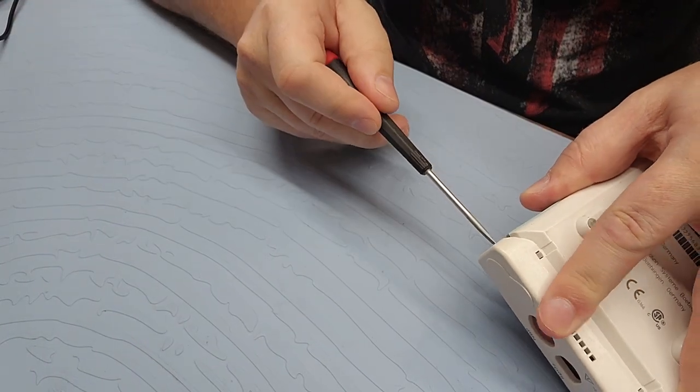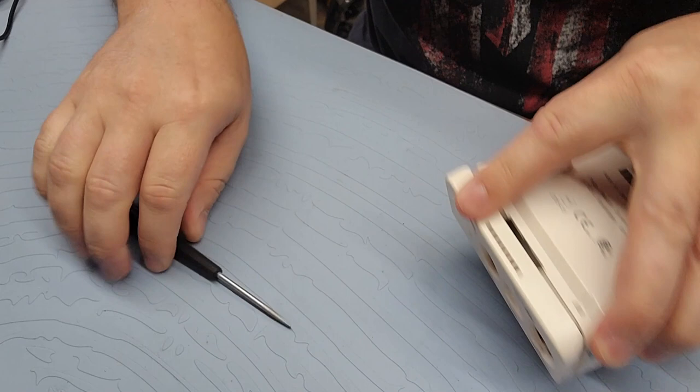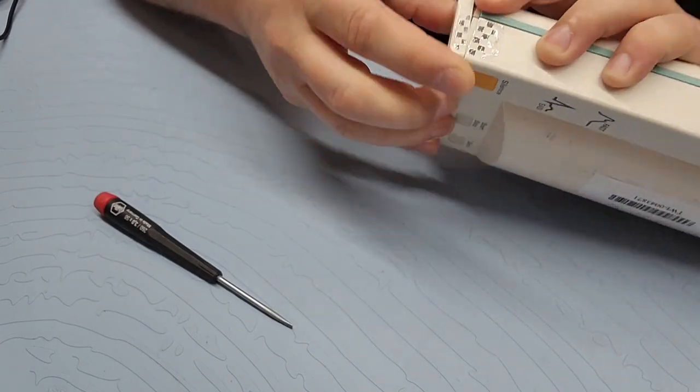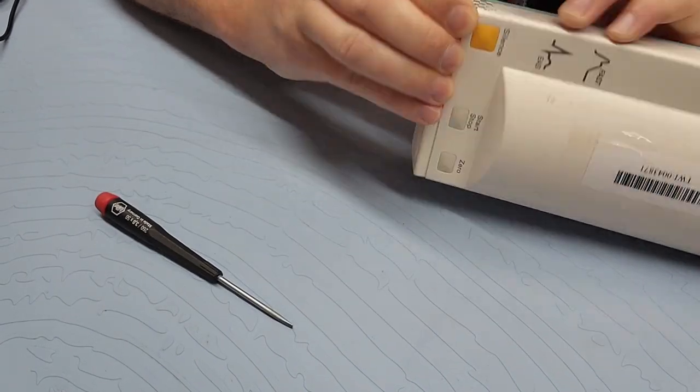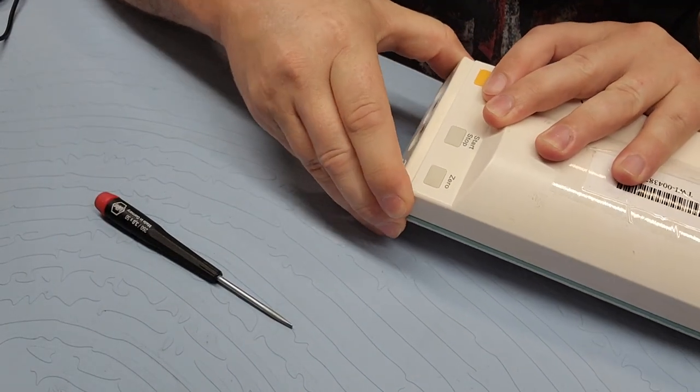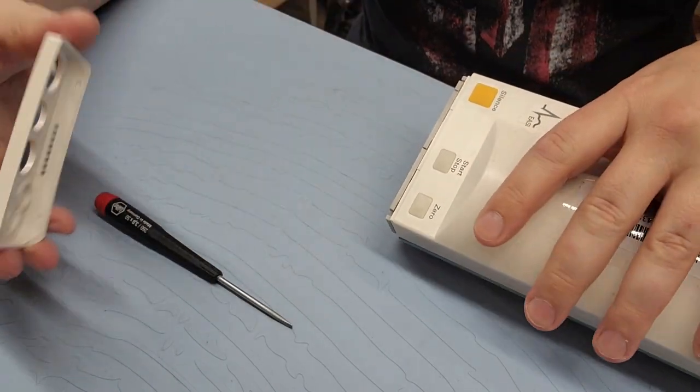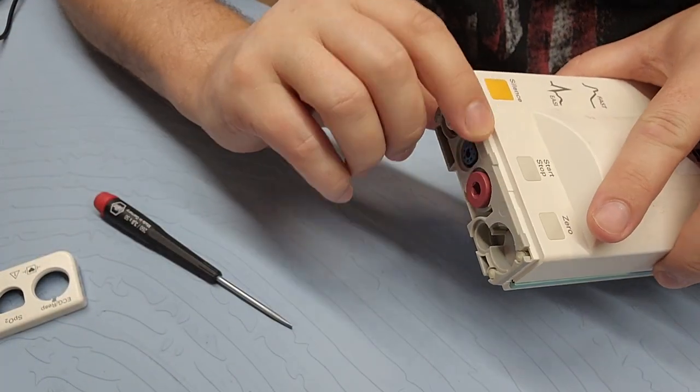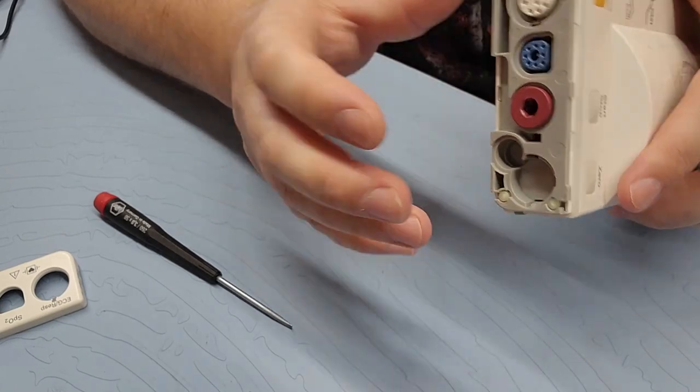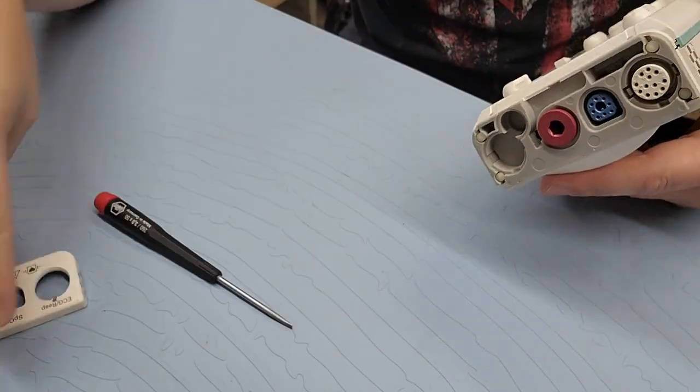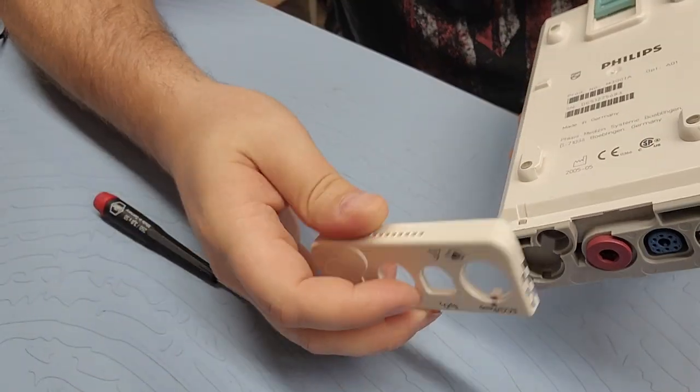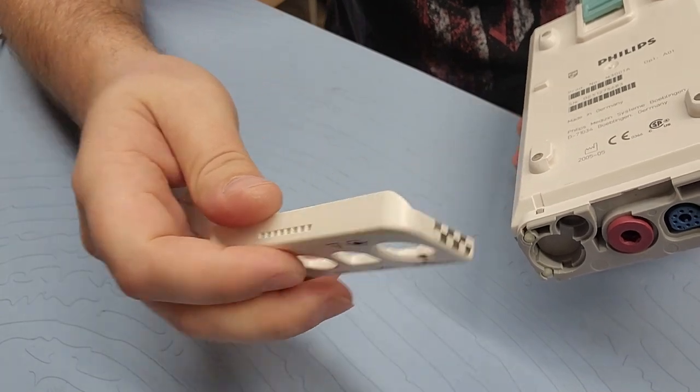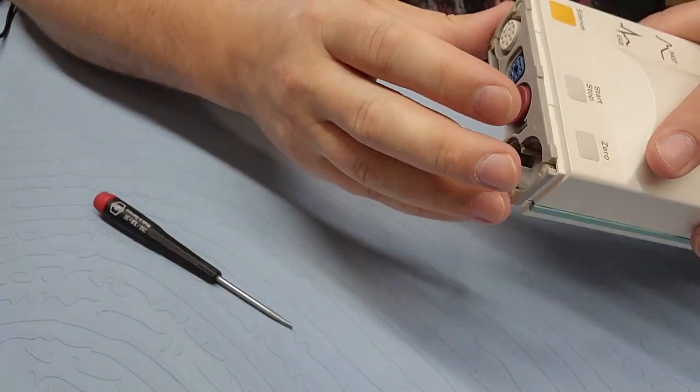And the faceplate rocks right off. Let's pull it off this way too. I didn't want to break it. So it is being retained by this upper lip, so you just got to rock it a little bit further. As things get older, plastic gets a little more brittle and I'm trying to be a little more careful.